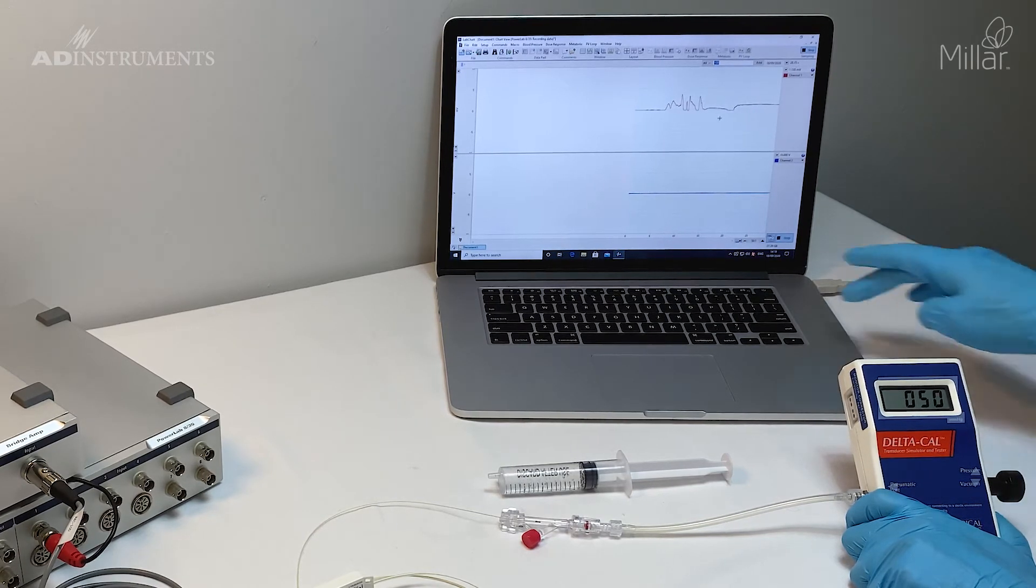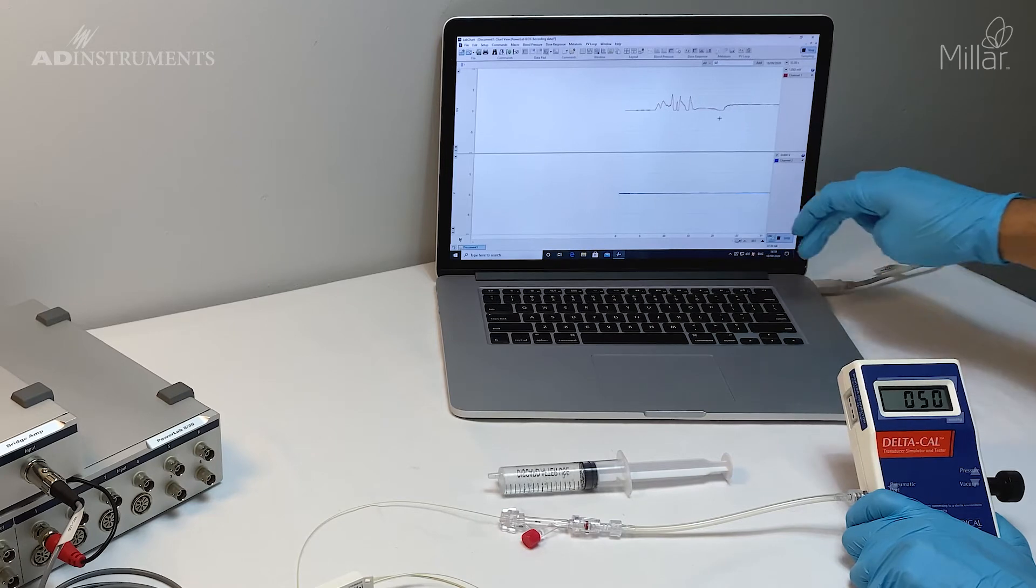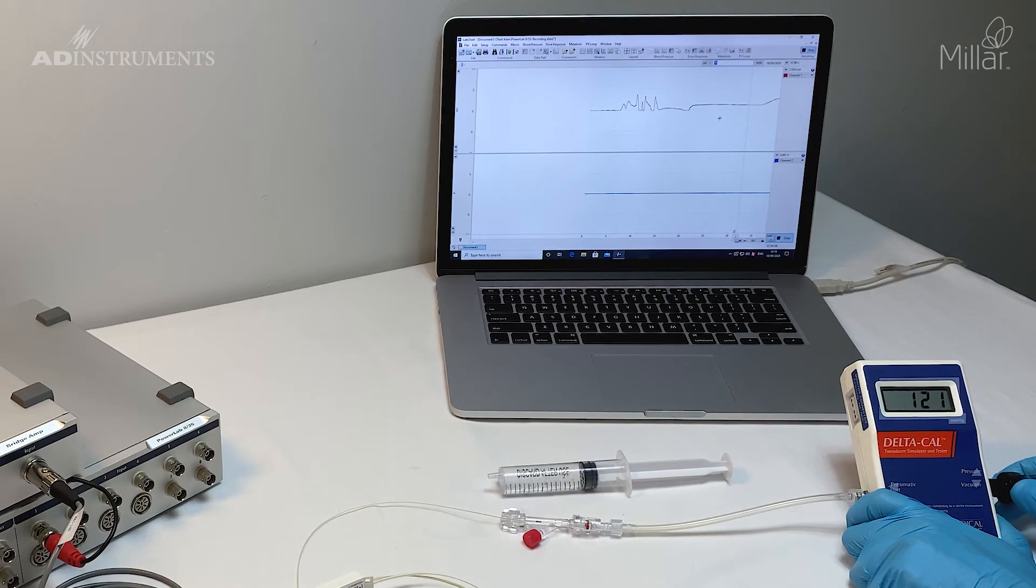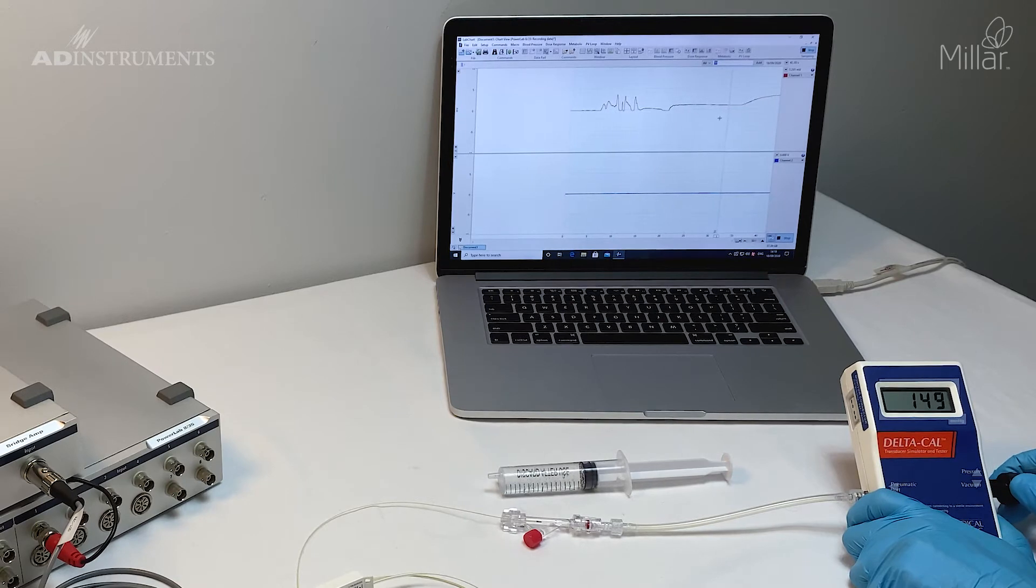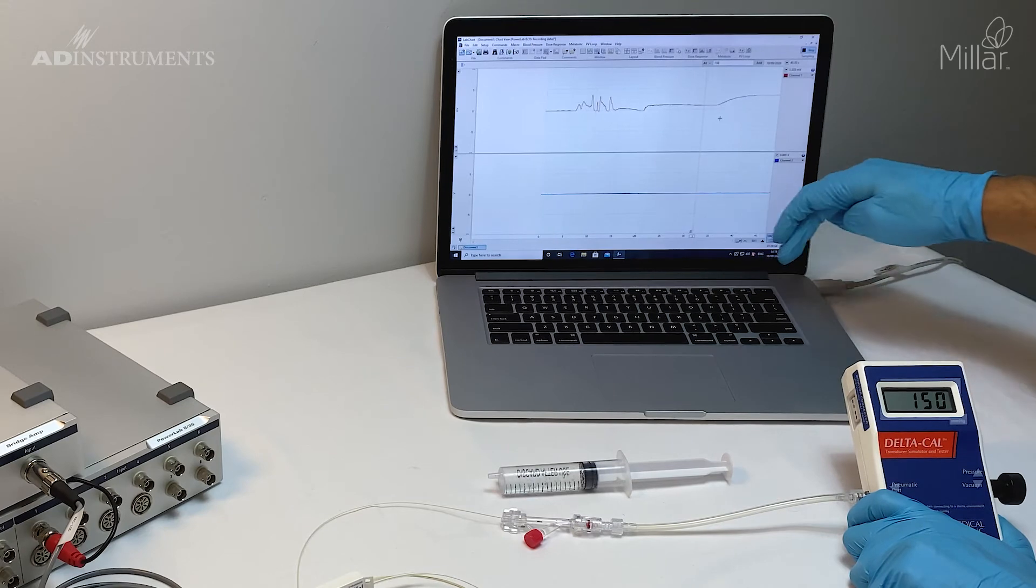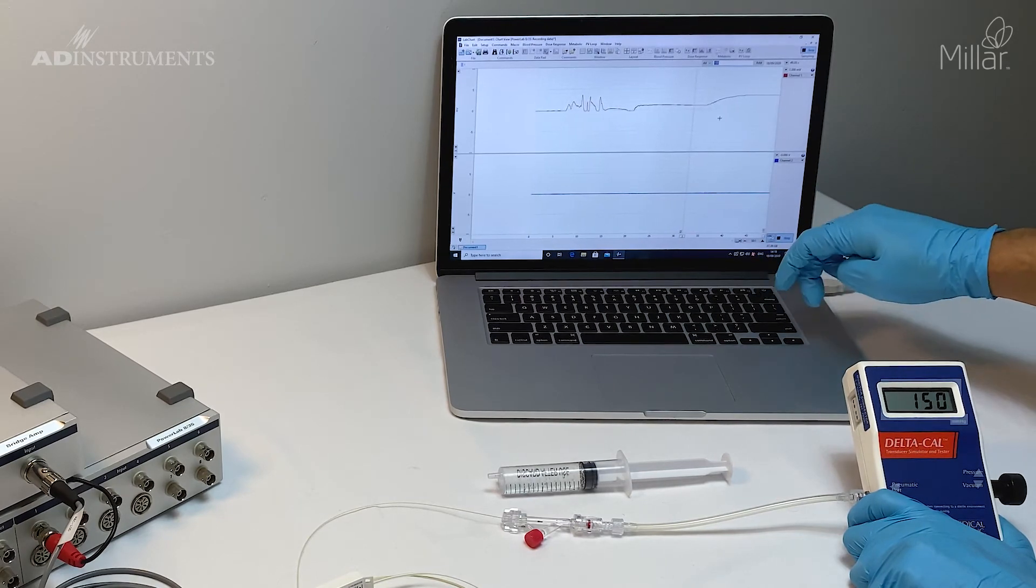Then I'll increase it to 150 and drop a comment for 150.